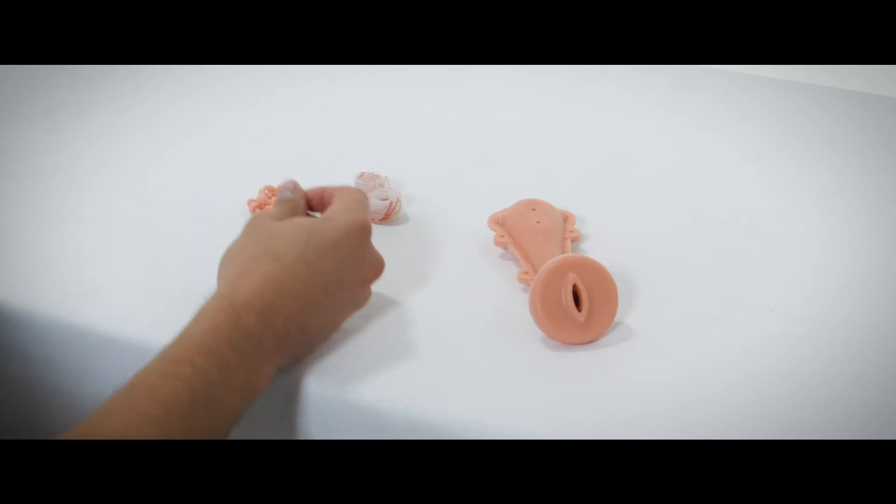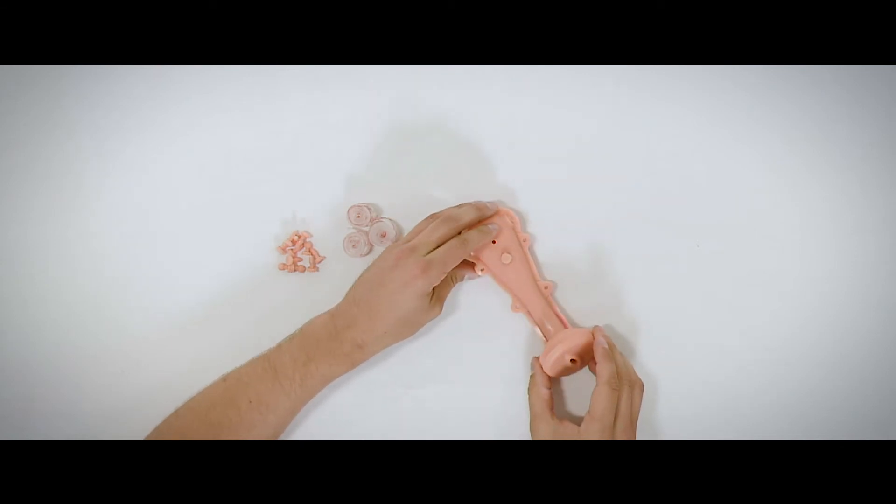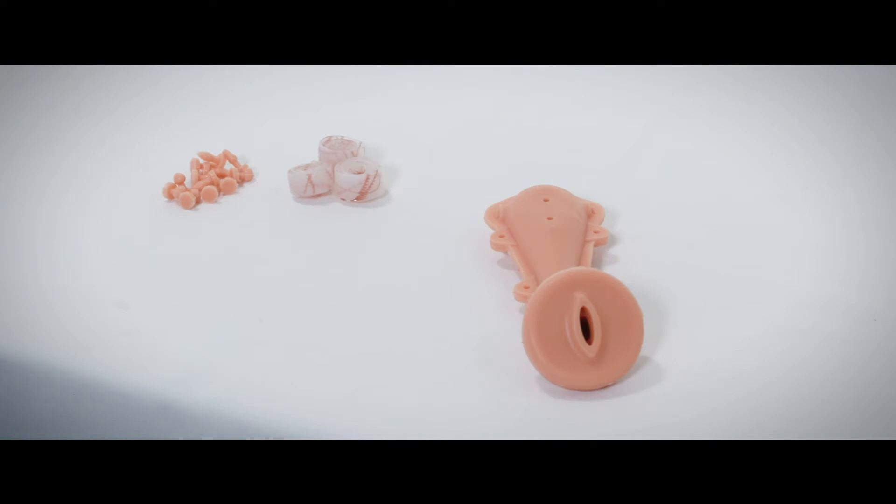These pathologies include polyps, which are placed into the uterus as so. The simulator comes with 50 polyps as standard and replacement packs of 50 are also available for purchase.